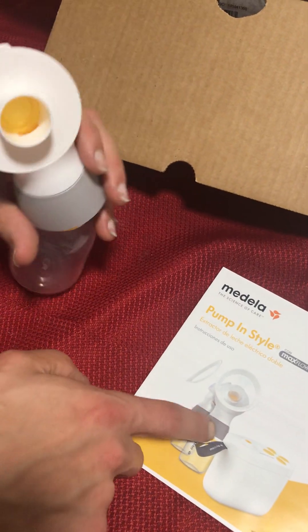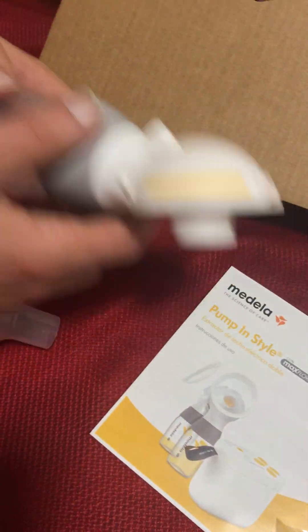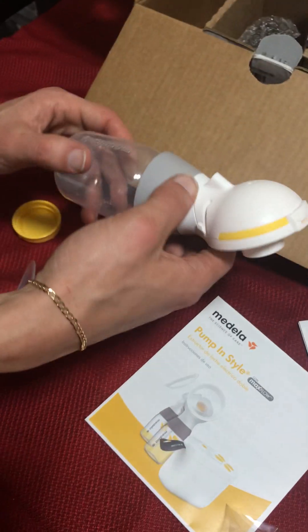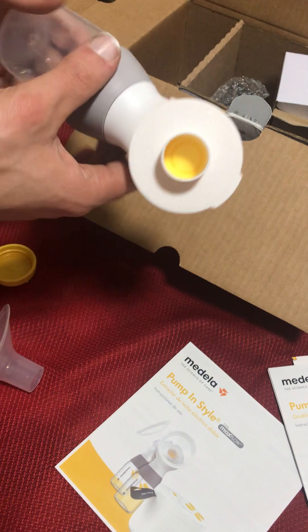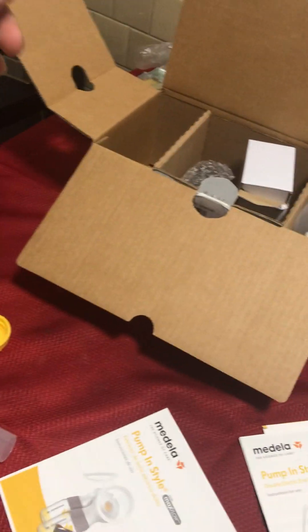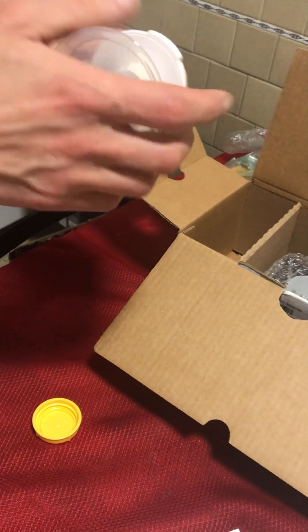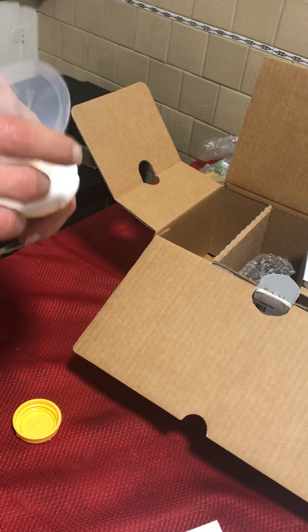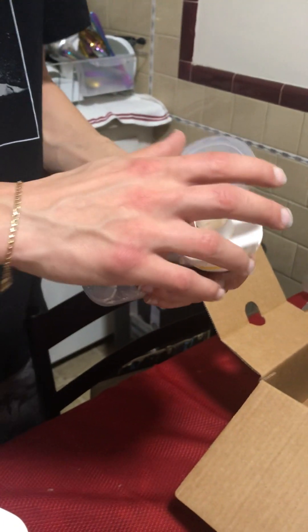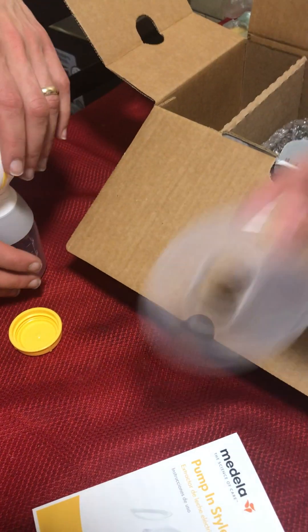What's next? You just need to take it out and put it in there. It's gonna fit like this one — see how it looks, how it fits. It fits! Then this one would be here. It's perfect, so cute. They have two — left and right — plus this. It's actually really simple to put together.